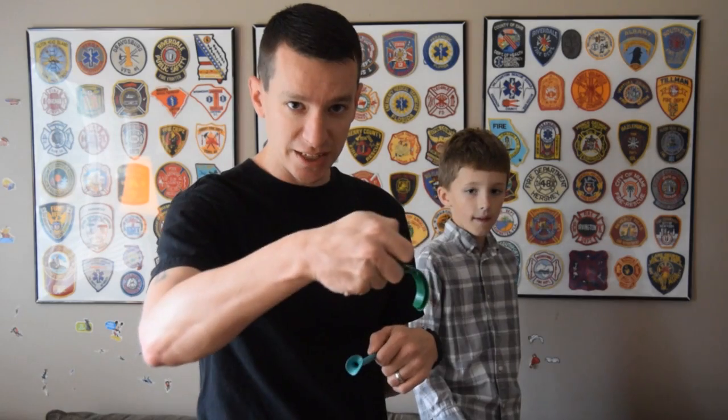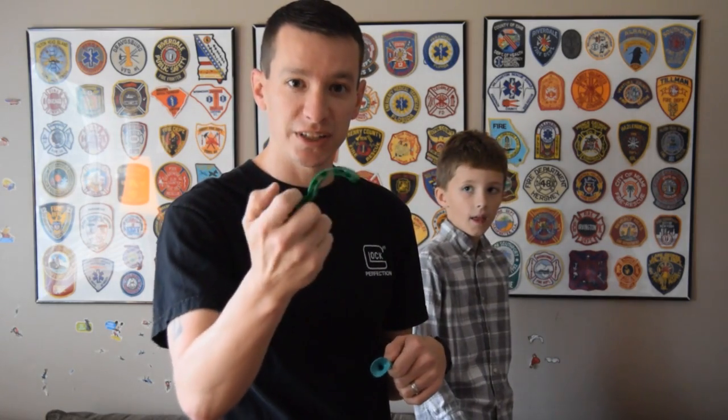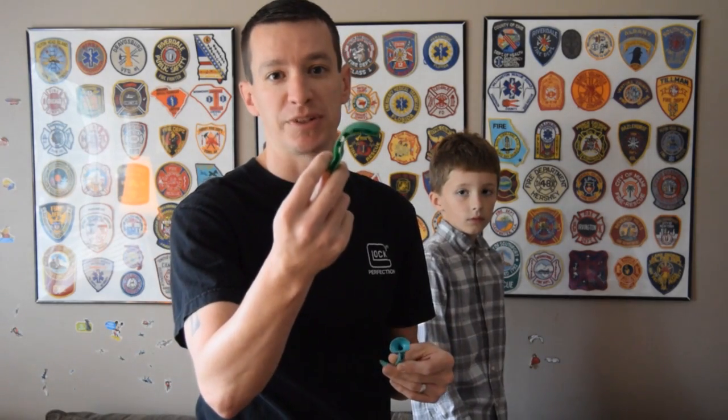So how do you determine if someone has a gag reflex? That's what this video is all about. I want to talk about how to determine if someone has a gag reflex or not, because if you insert this into someone's mouth and they still have an intact gag reflex, they're going to vomit. You're putting this into someone who has an altered level of consciousness who's not able to protect their airway — you put this in and they vomit, that's a real issue. So this nasal device may be the better choice, and it also does a really good job of protecting the airway.